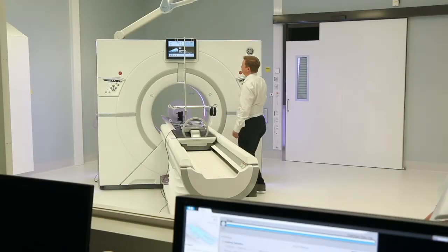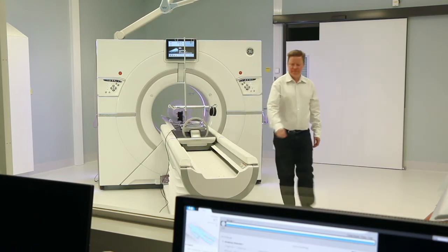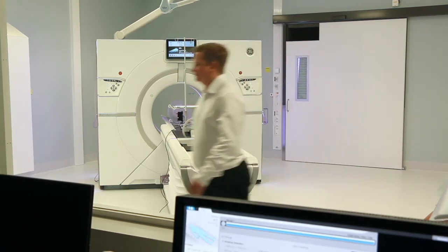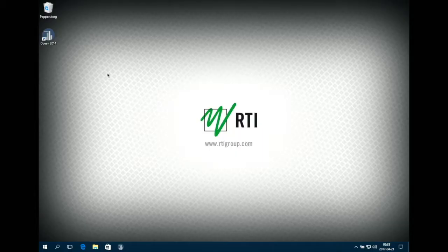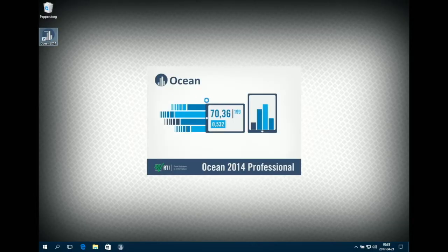Set up your CT to be ready for the measurements. Since this is done differently on different CTs we will not guide you through this step. Start Ocean 2014 on your laptop or tablet.